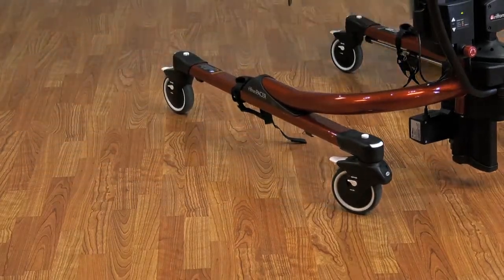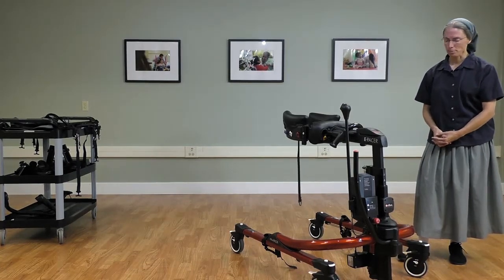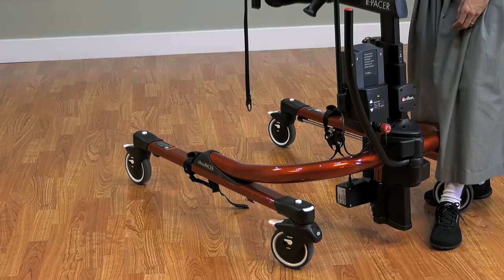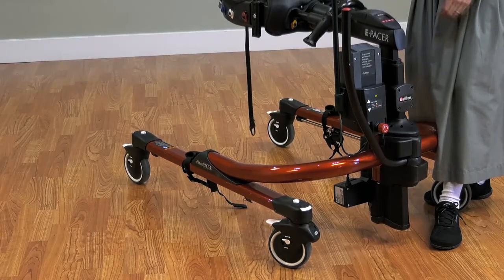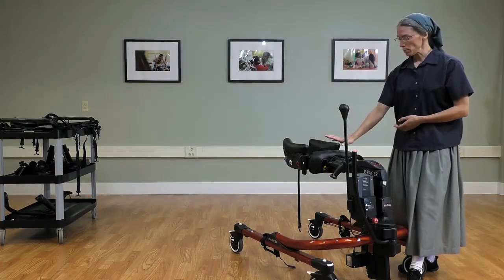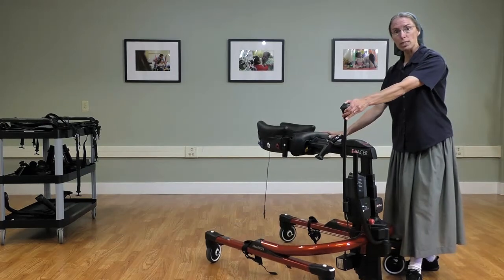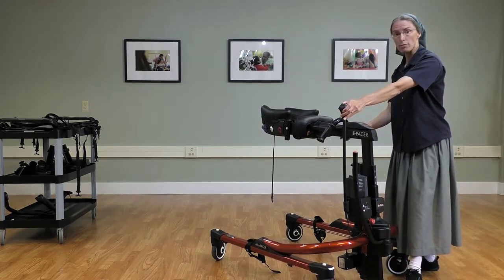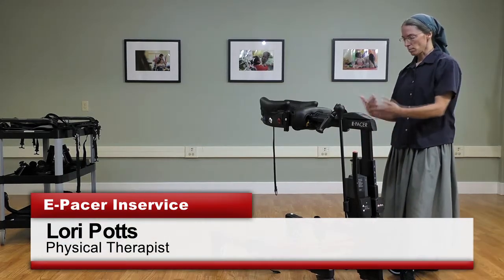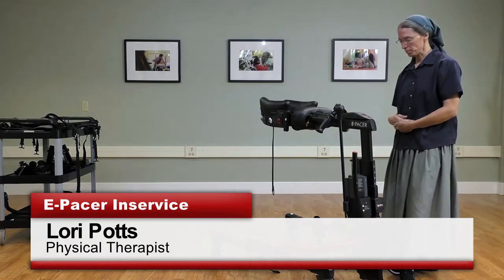The beauty of the base is that it is ideal for gait training. We had heard from our field that it was difficult to perform the sit-to-stand transfer to get clients into the pacer, so this meets that need by doing the battery-powered lift to transfer the individual up into the device for gait training. We also have the ankle prompts to help prevent scissoring and adjust for stride length, which is not available on the tram.